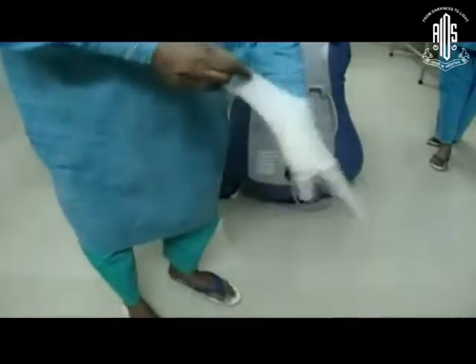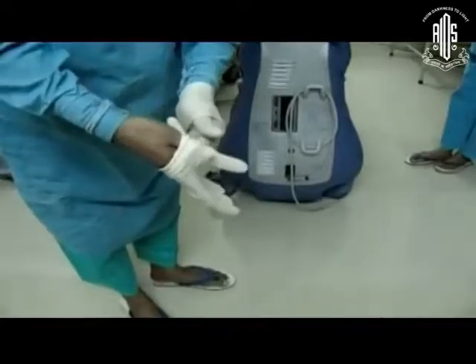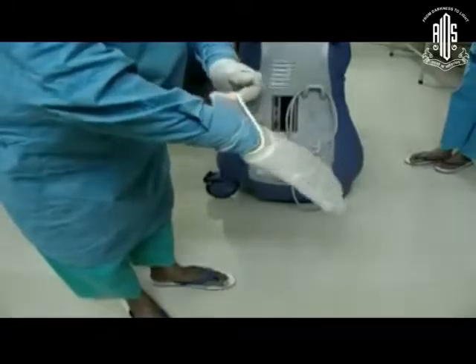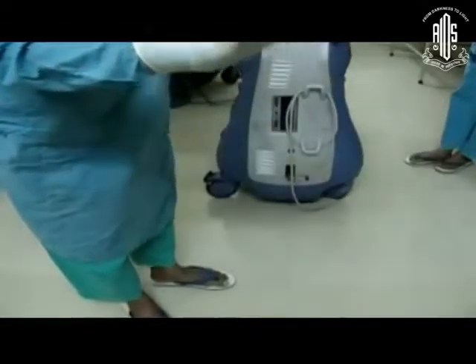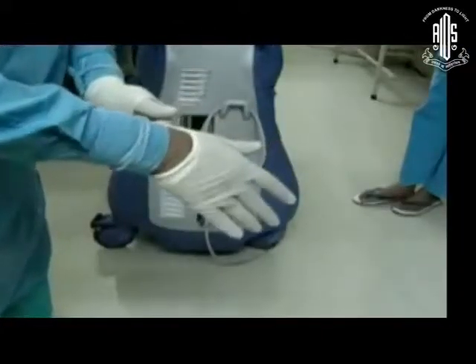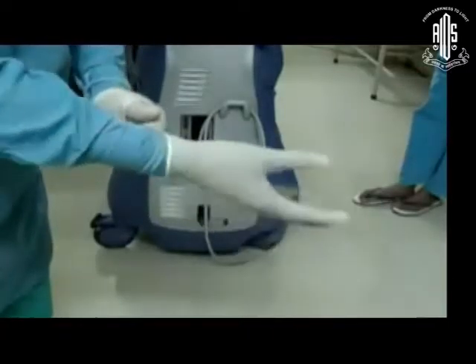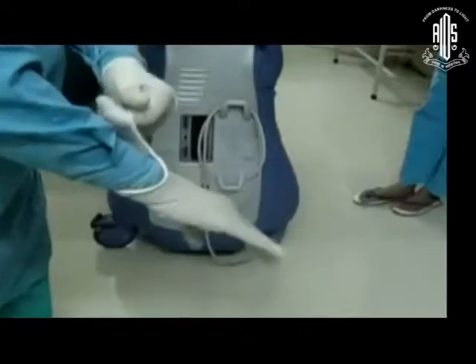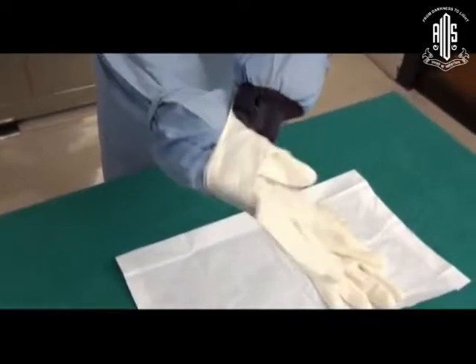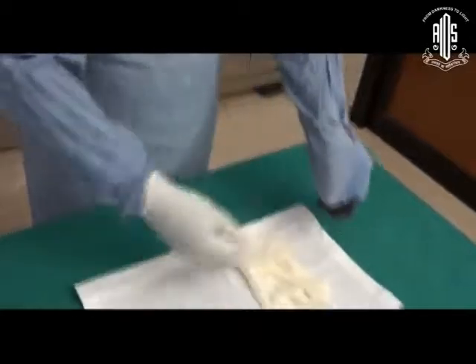The first glove goes in. Look at the second glove — see the back of it as it rolls inward before coming out. It has touched the skin, so the outer surface of the glove has touched the skin. You can see this in slow motion. To prevent this, use the no-touch technique. It may be a little difficult initially, but if you start practicing it is very easy.